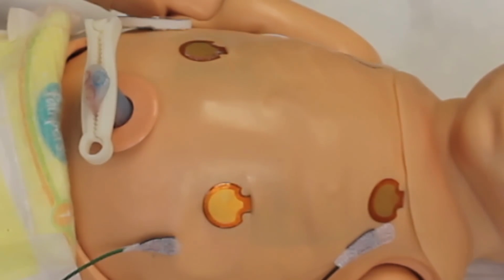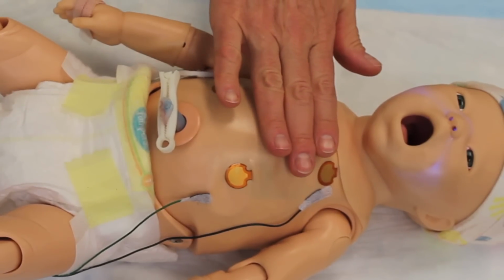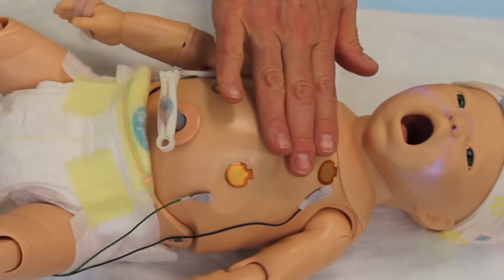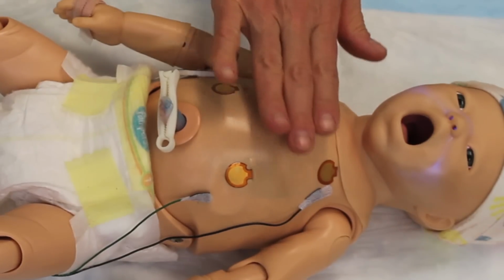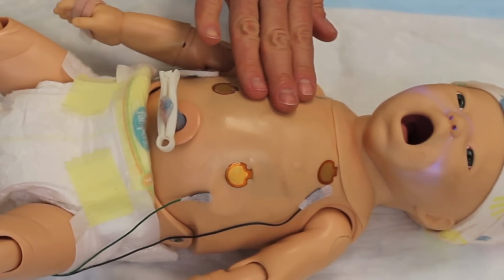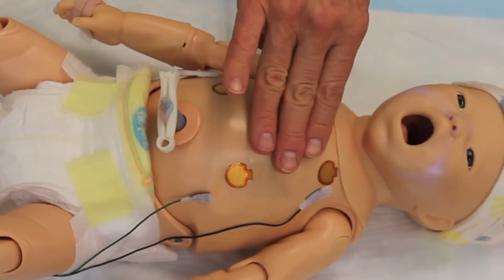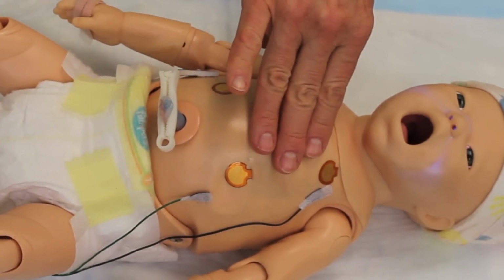If you're not certain whether the baby's having a pneumo, one of the things you can do is lay your whole hand over the chest, and then you'll be more easily able to tell that one side is rising over the other. I'm going to show you right pneumothorax next. In right pneumothorax, we only see the left chest rise. One thing you should be aware of is that a lot of people confuse this for an active precordium.